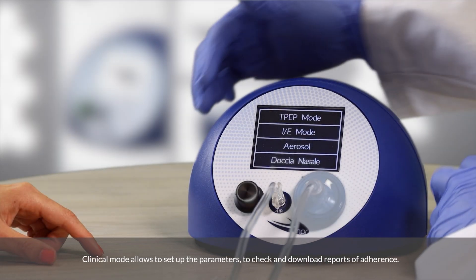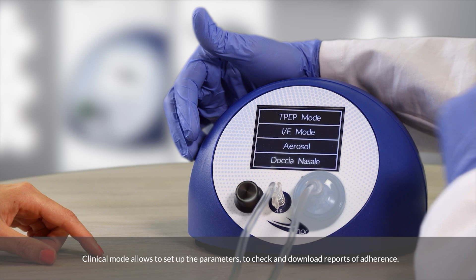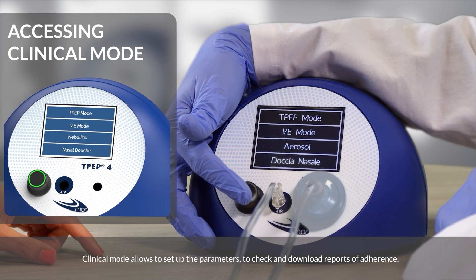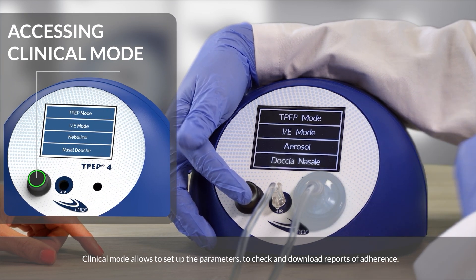Clinical mode allows you to set up the parameters, check and download reports of adherence.